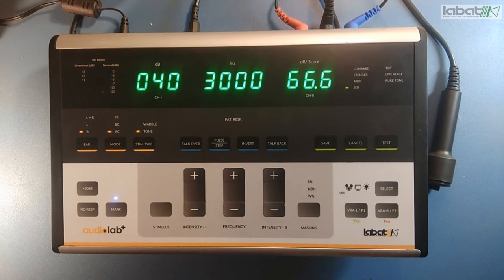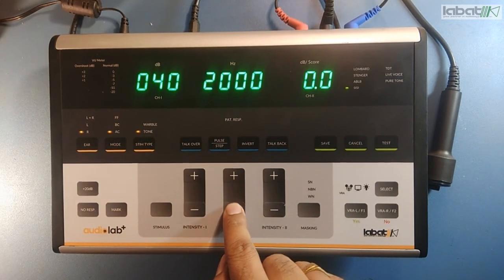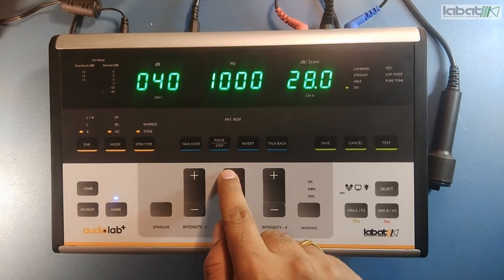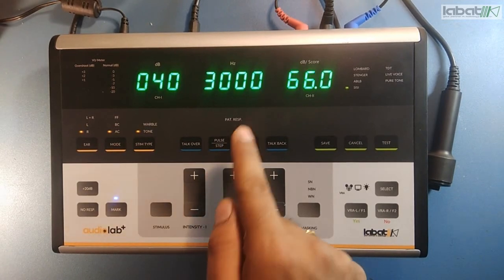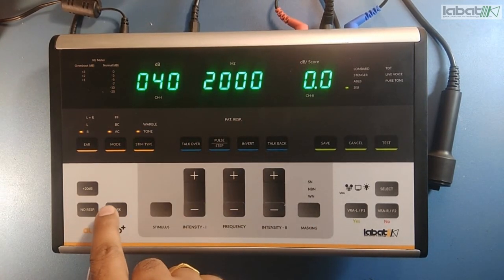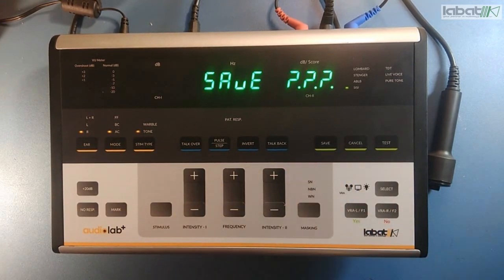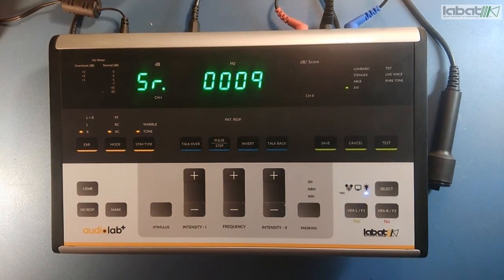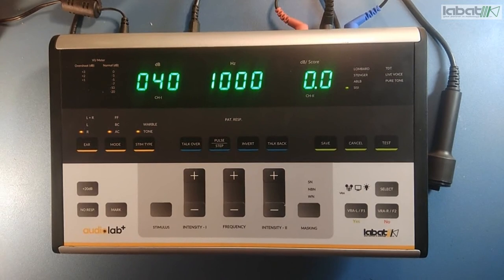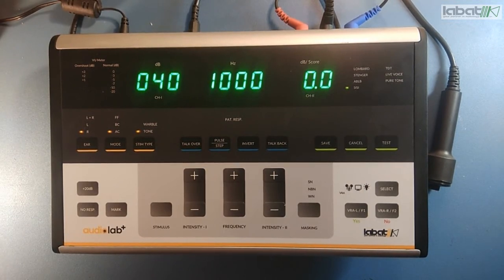So similarly you can stop it here. You can mark these values at different frequencies — like I marked at 1k and 3k. I have it marked at 2k. So the light is not glowing here. You can save the test — press save and then yes. The test will be saved and the equipment will move to another serial number.